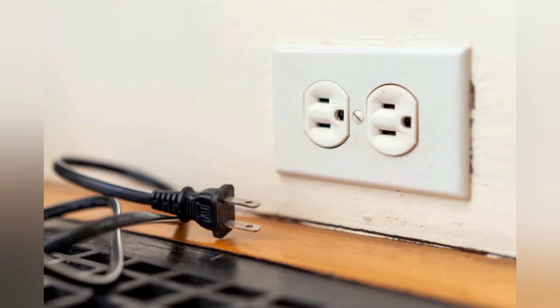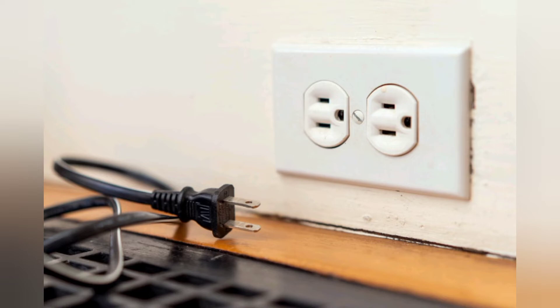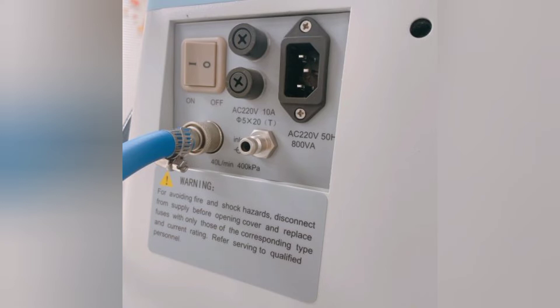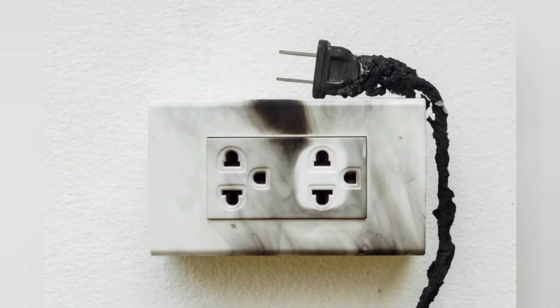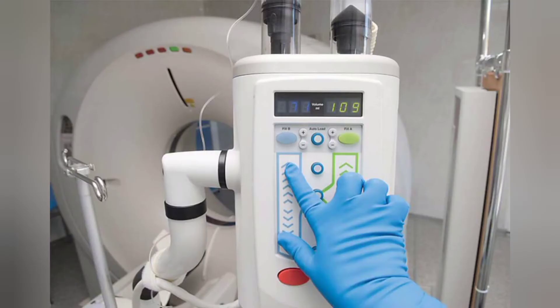After that, check the condition of the power plug and power cable. Before plugging in, you must check the continuity of the power plug and cable, and then the continuity of fuses. This step is very important in the PM procedure because if any accessory is faulty and you plug in the equipment without checking, it can harm the equipment due to short circuit or damage from power fluctuation.